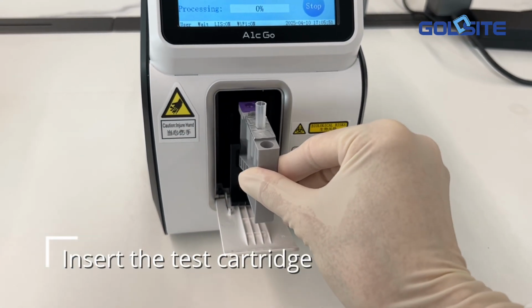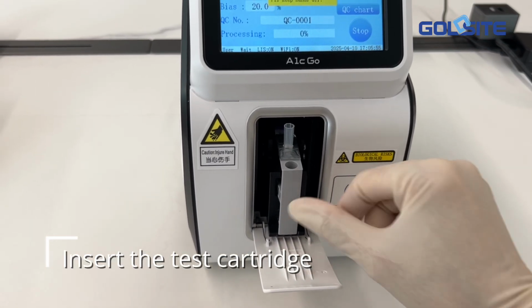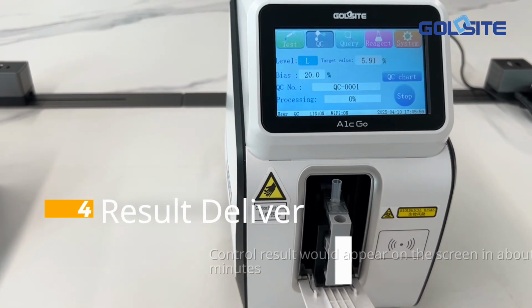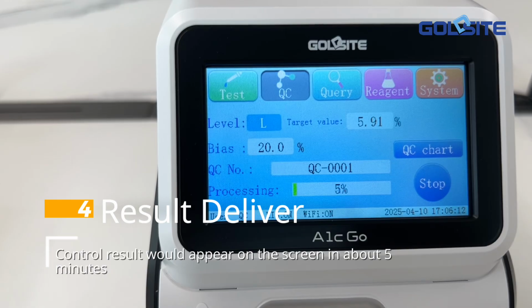Insert the test cartridge. Control result would appear on the screen in about 5 minutes.